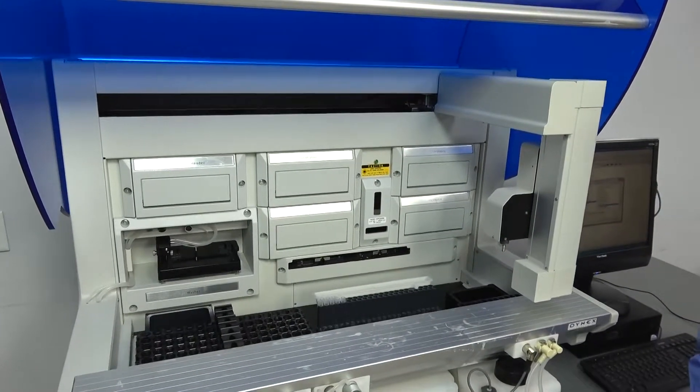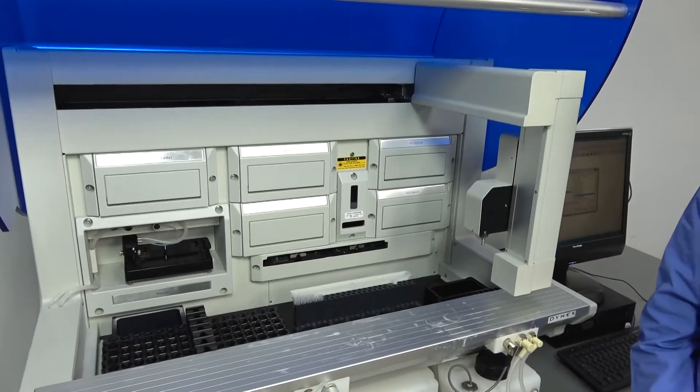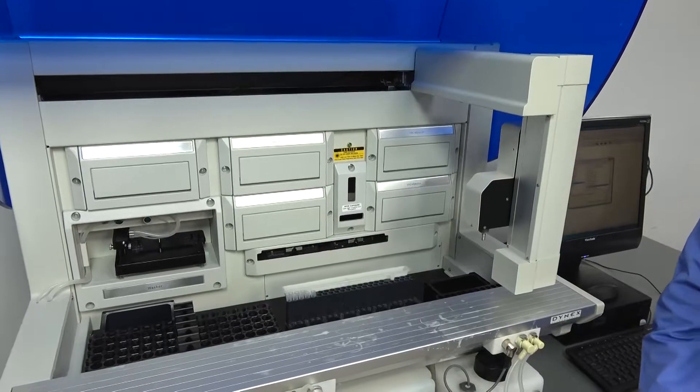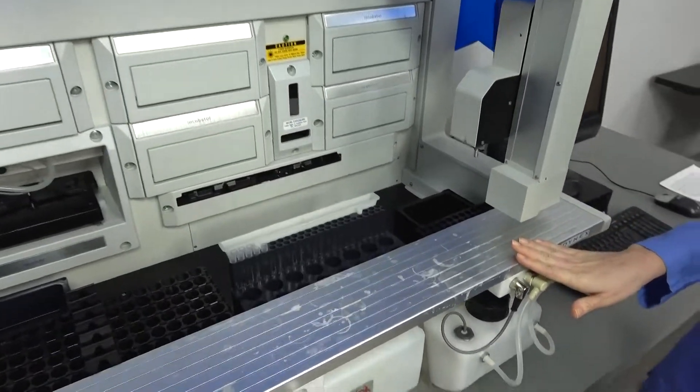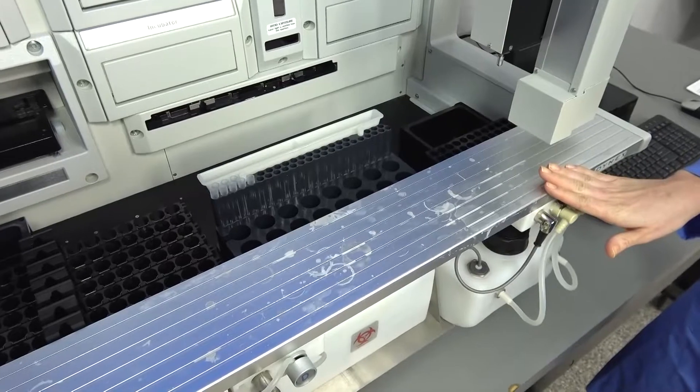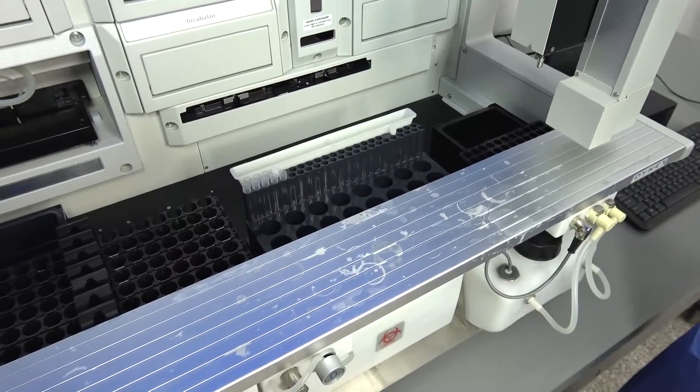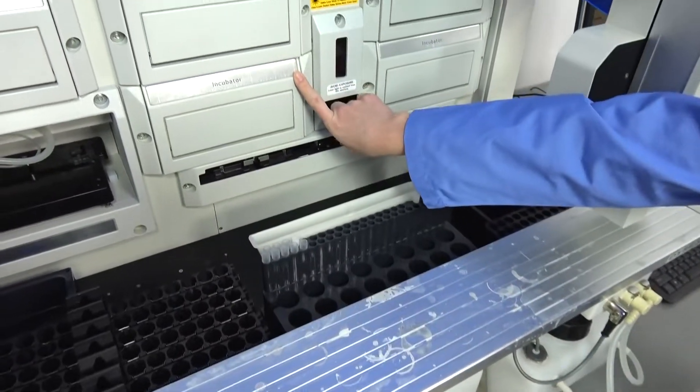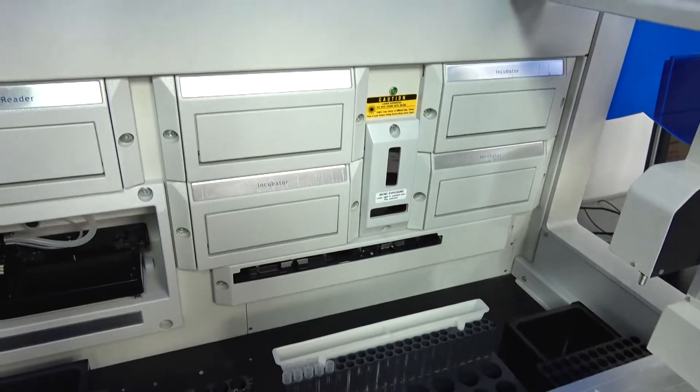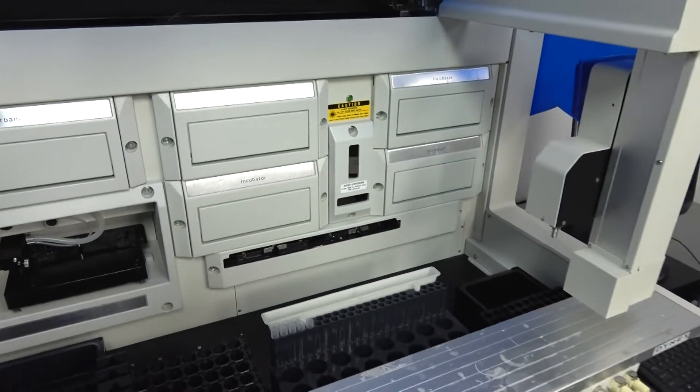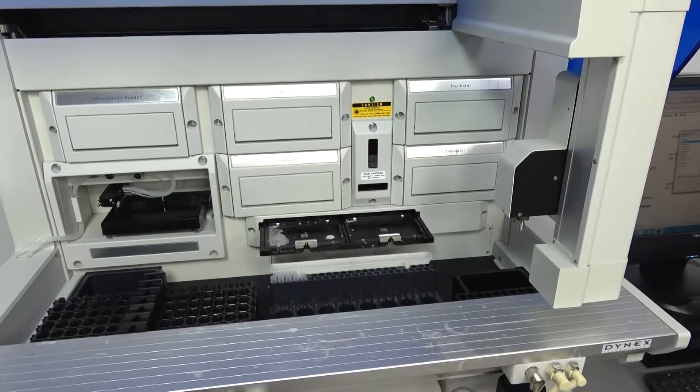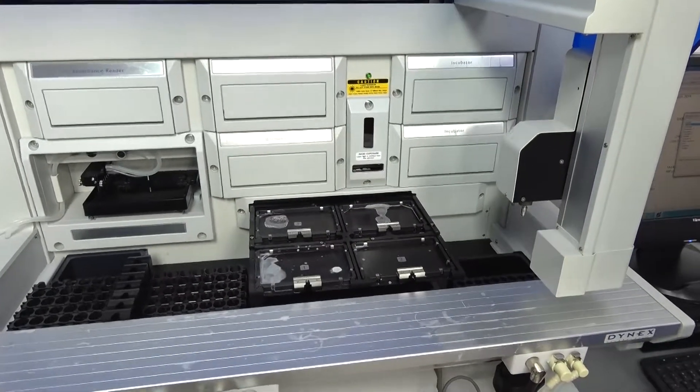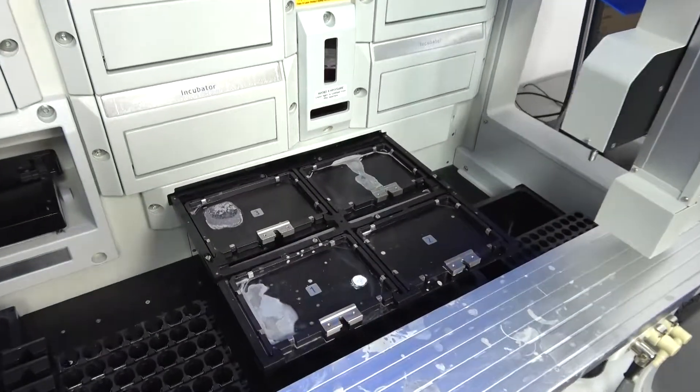And on the internals of this machine, you can tell it's in really good condition as well. There is a slight staining here on the tray and there are some slight stains on the incubator module labels as well. I'm going to release the drawer so that you can see the inside here also has a little bit of corrosion and staining.